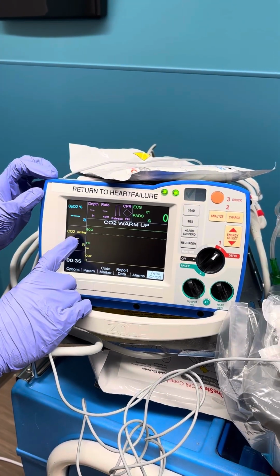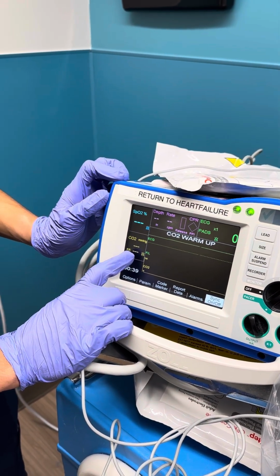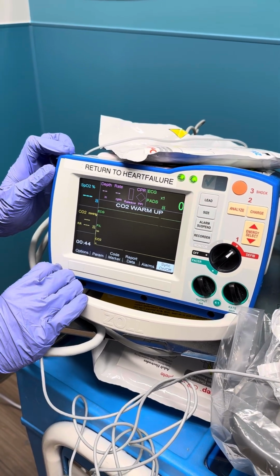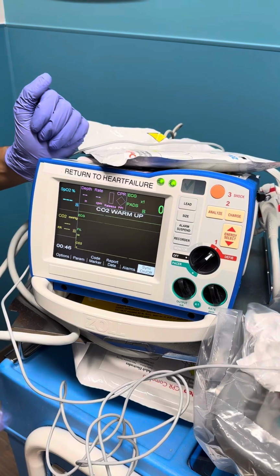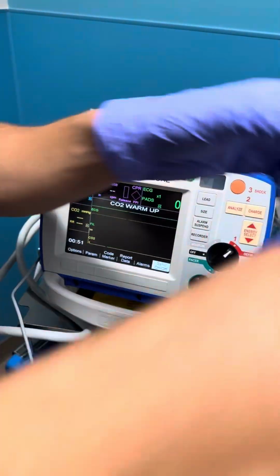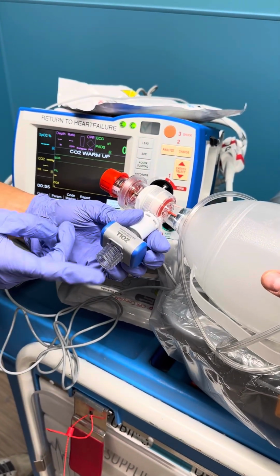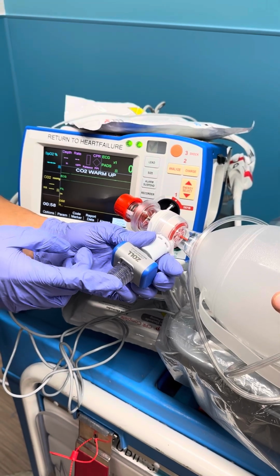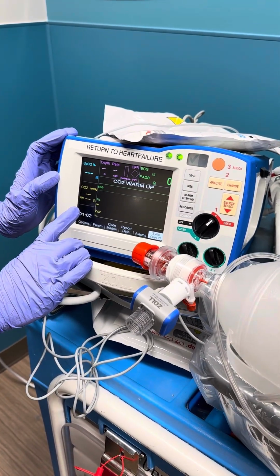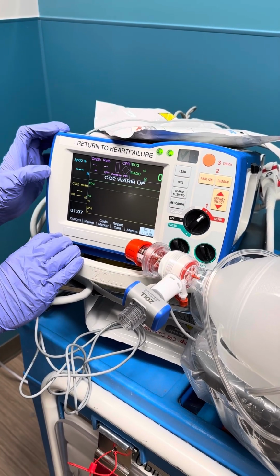You will see the end-tidal CO2 reading at the top, along with the patient's respiratory rate at the bottom. So what we can gain from this information is, say we are bagging our patient, the emergency doctor comes up to the bedside and intubates the patient. This adapter can now be fit onto the top of the ET tube. At that time, we'd look here for an ETCO2 reading. If we have one, we know we have confirmation of correct ET tube placement.